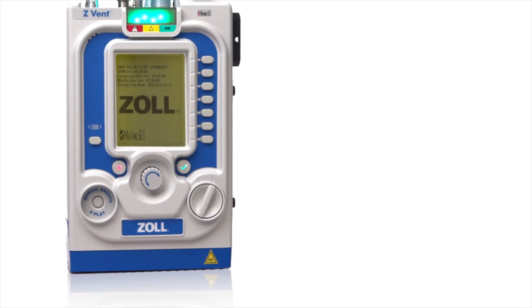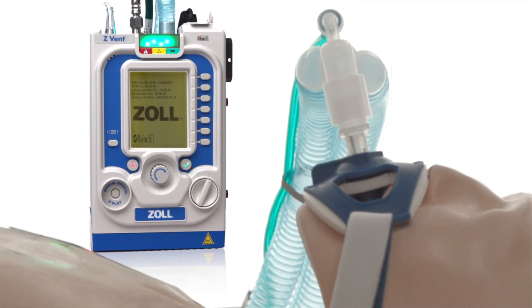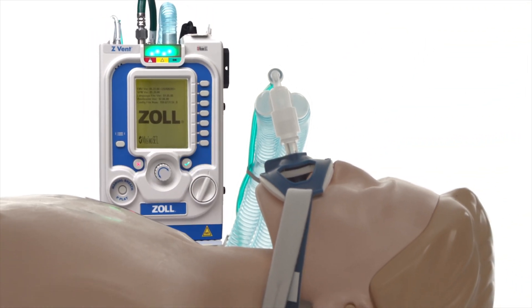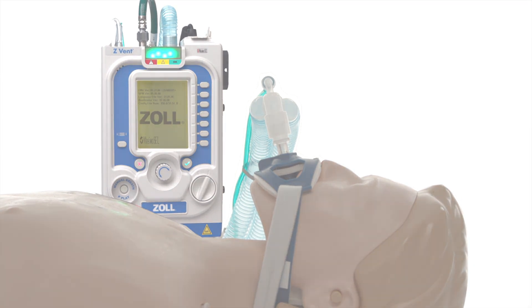We have now completely reviewed navigating the parameter secondary context menus. Throughout the other modules, we will continue to explore the device's functionality and how to prepare the ventilator for use.